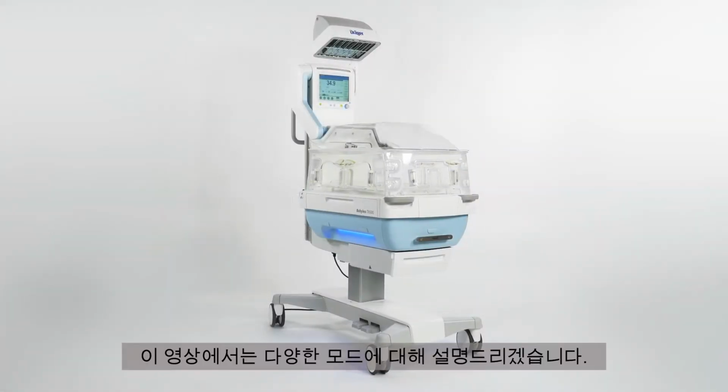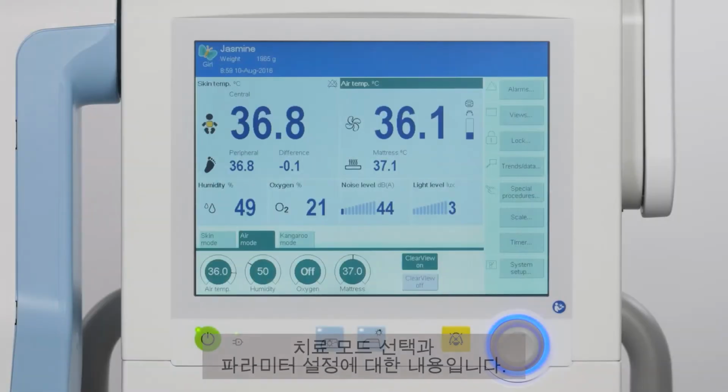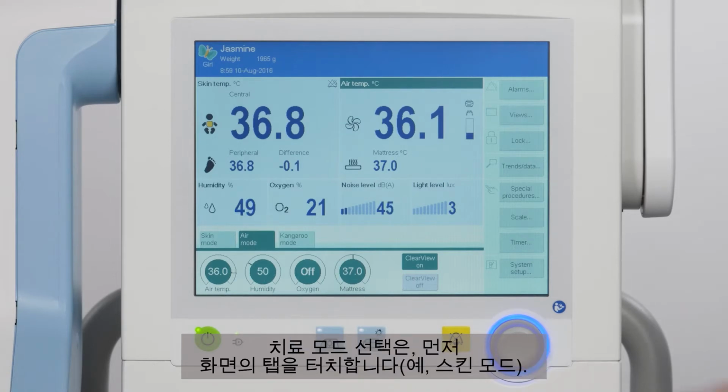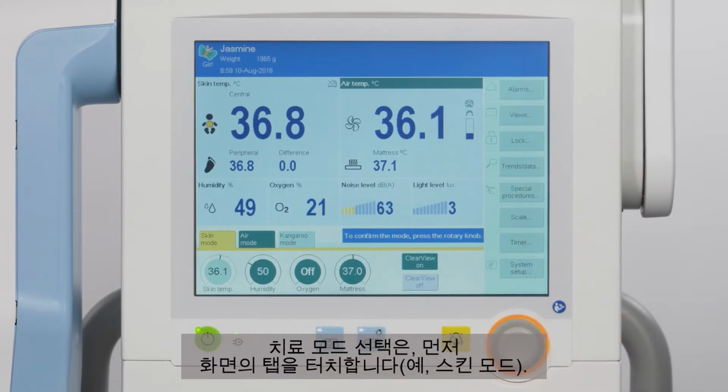In this part of the video, we will describe the various different modes. Here's how it works when selecting a therapy mode and setting a parameter. For therapy mode selection, first touch the tab on the user interface, for example, the skin mode.